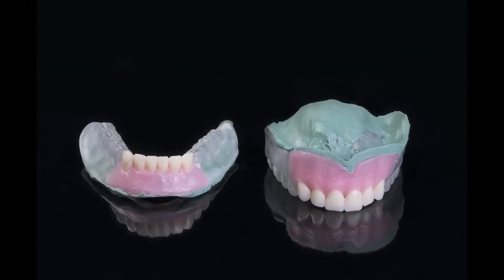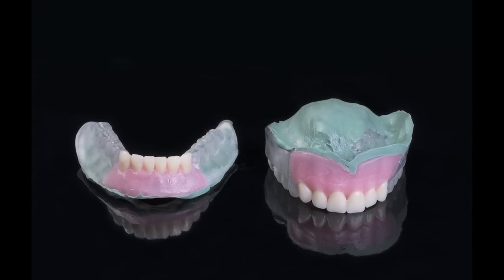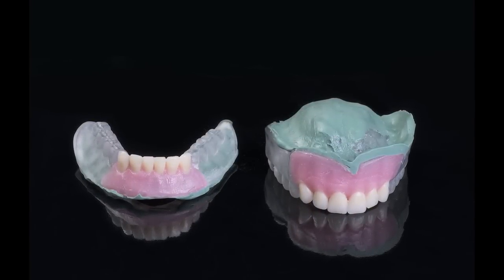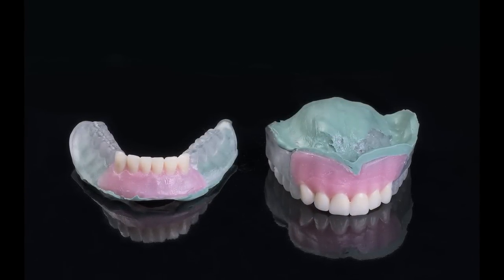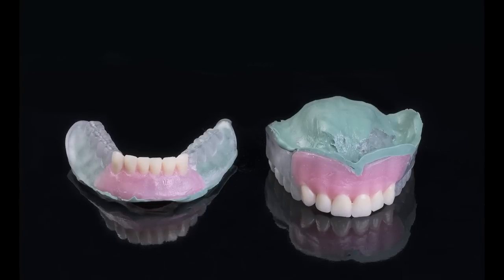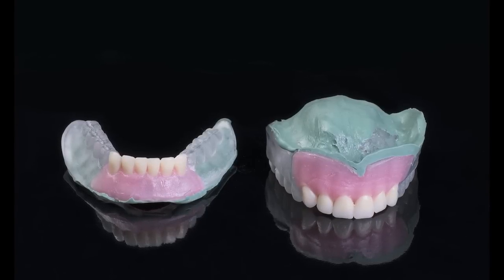If the denture is too loose, the clinician can make a simple wash-reline impression of the try-in denture and send it to the lab to ensure the final restoration fits perfectly.